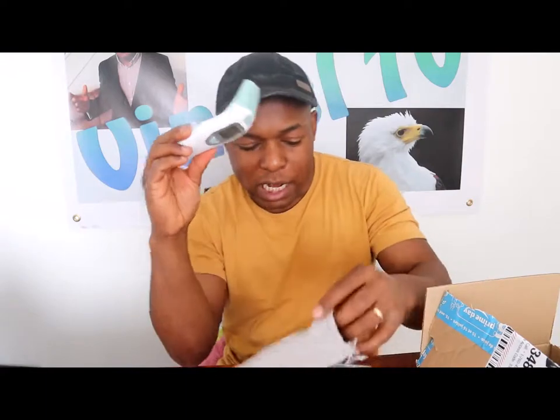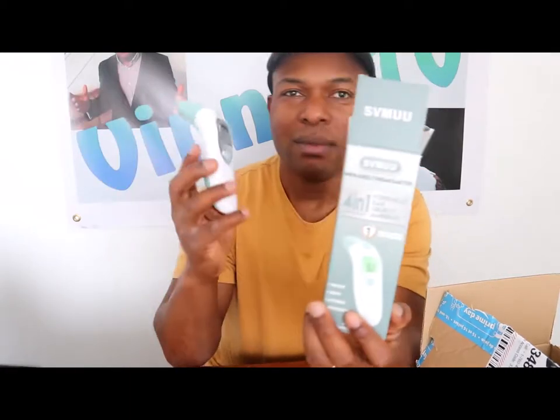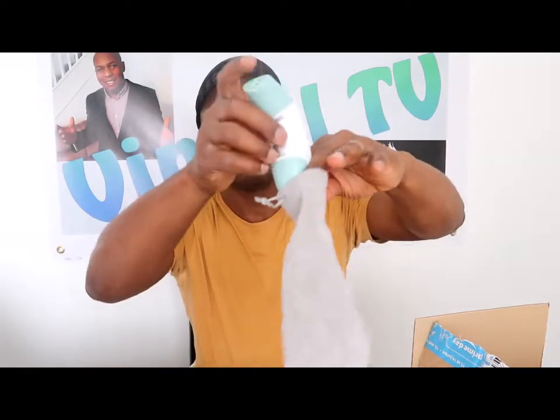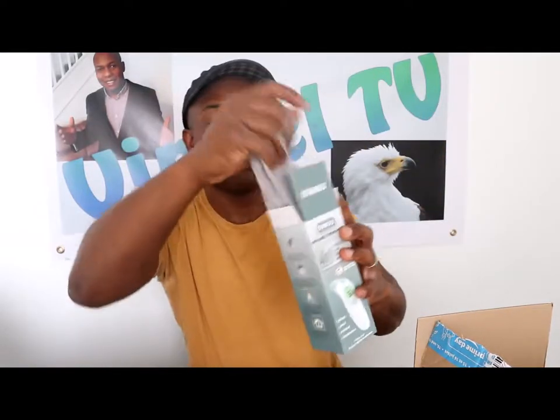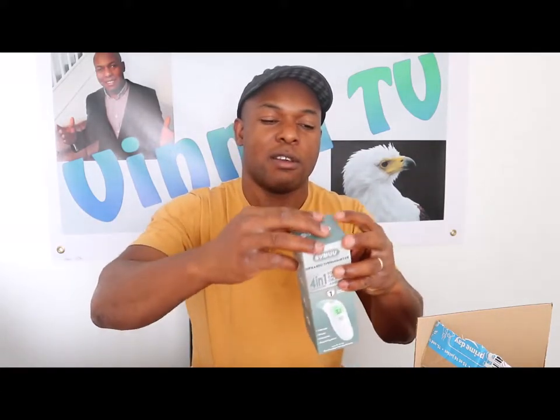Normal body temperature is 37.0 degrees. If you are new to this channel, please consider subscribing — thank you very much and God bless you. Try and endeavor to have this in your family. This one is called an infrared thermometer. It's very good for you and something you need to have in your family, especially if you have kids. You can purchase this from Amazon. To put it back, place it in the bag and make sure it's sealed properly.